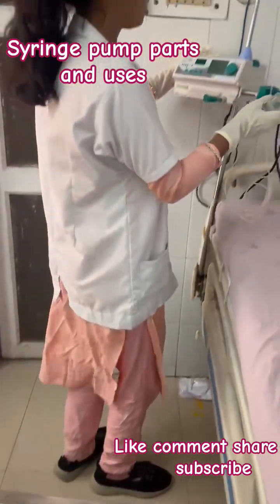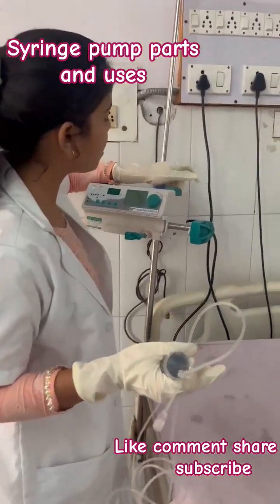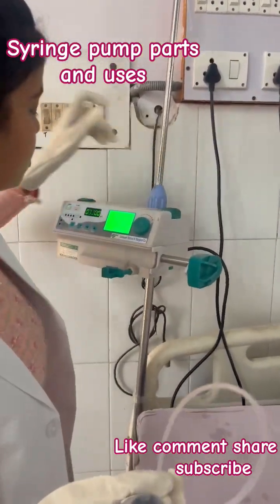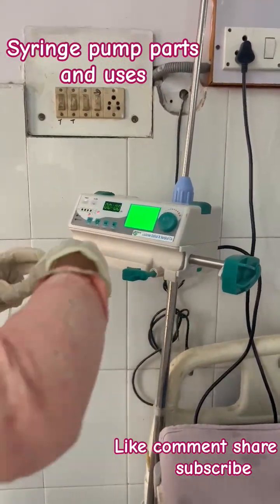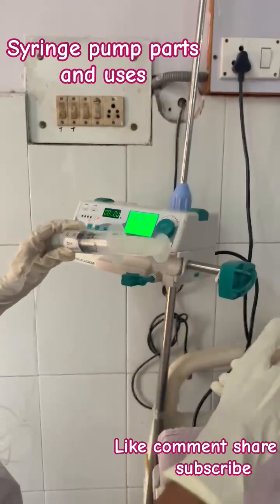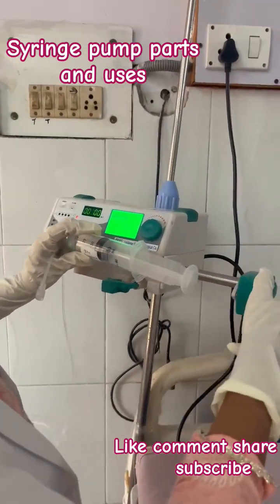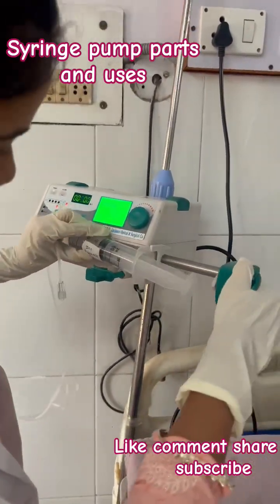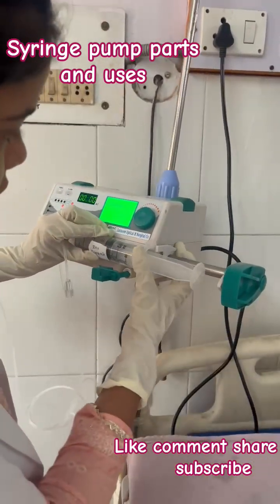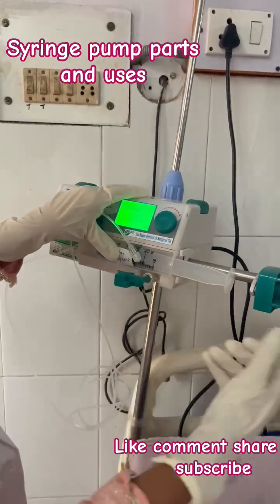After that, you have to switch on the syringe pump. Then fix the syringe into the syringe pump. Pull the syringe plunger, then fix it into the syringe pump like this.